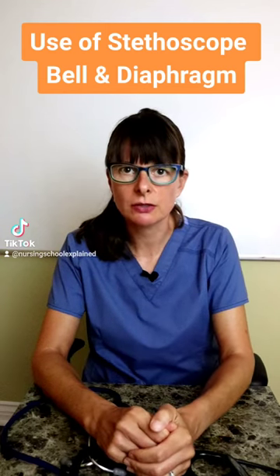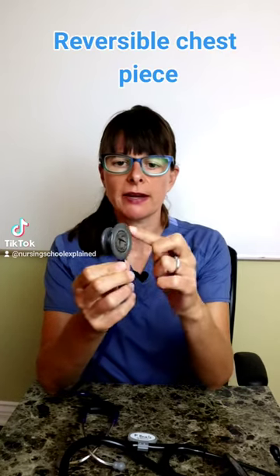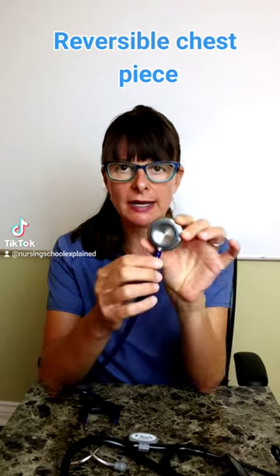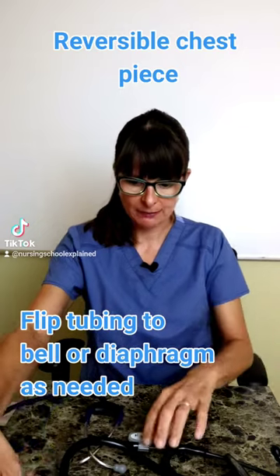Make sure that you know how to use your stethoscope, as the bell and the diaphragm can be different in different stethoscopes. For this one, for example, the stethoscope has a reversible chest piece where the diaphragm and the bell are on different sides, so you just need to flip around the tubing to listen to the appropriate side.